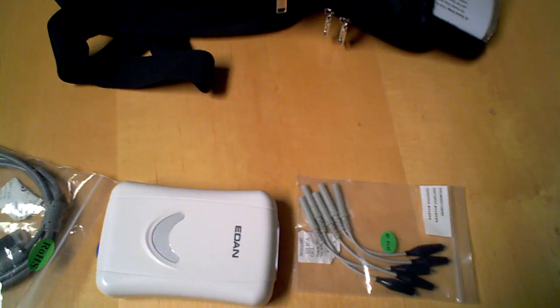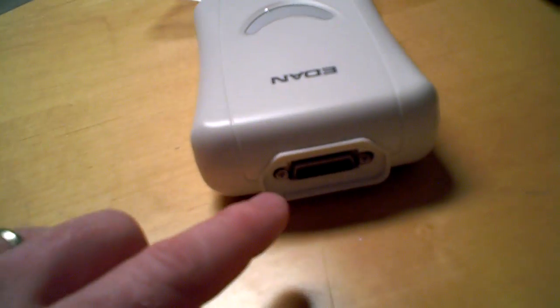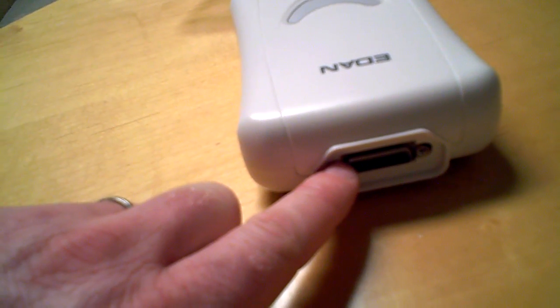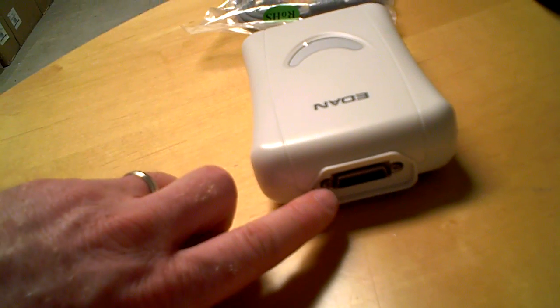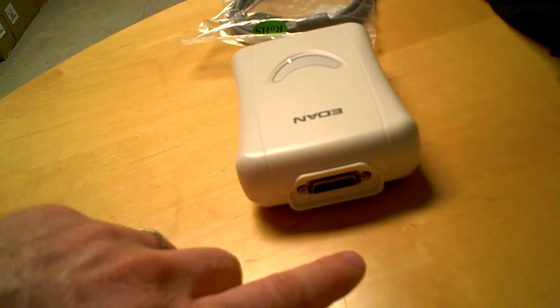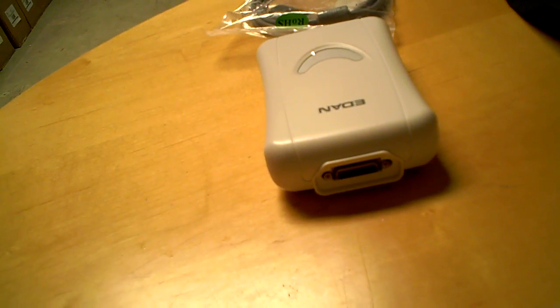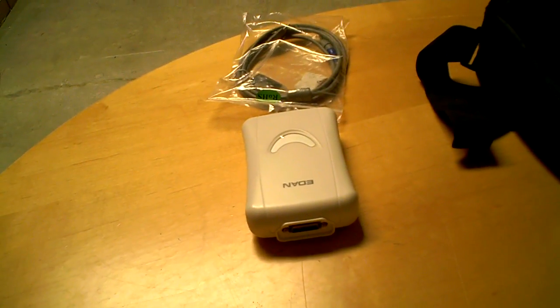You'll have your patient lead cables that will actually connect here to your serial port, and like we've discussed in the past, pretty similar serial port to the actual cable hookup which goes to the respective 10-lead cables, which then would be connected to the patient.